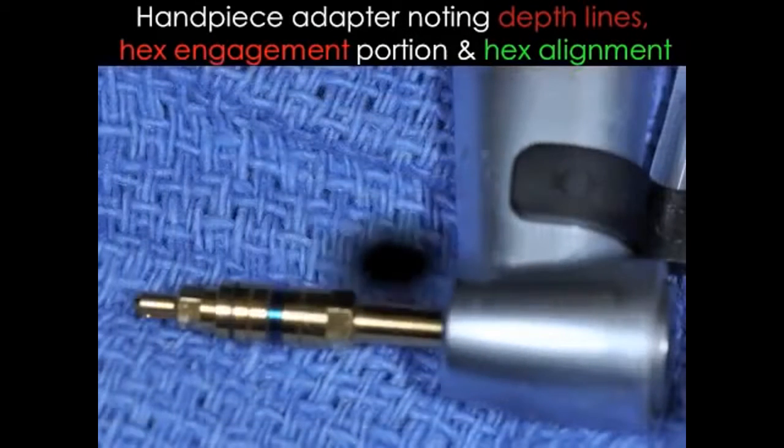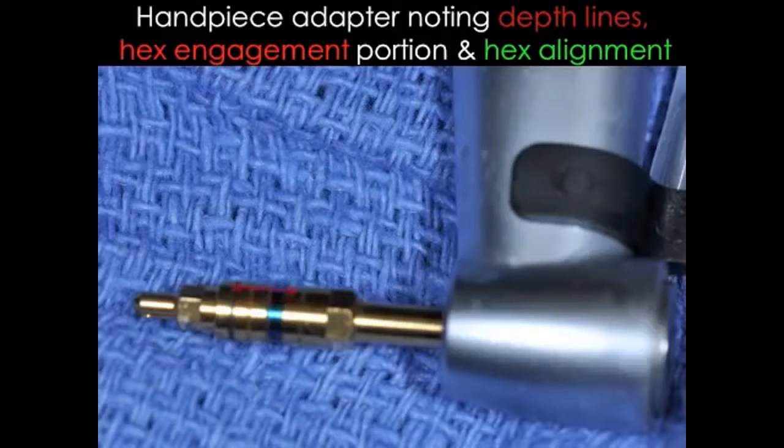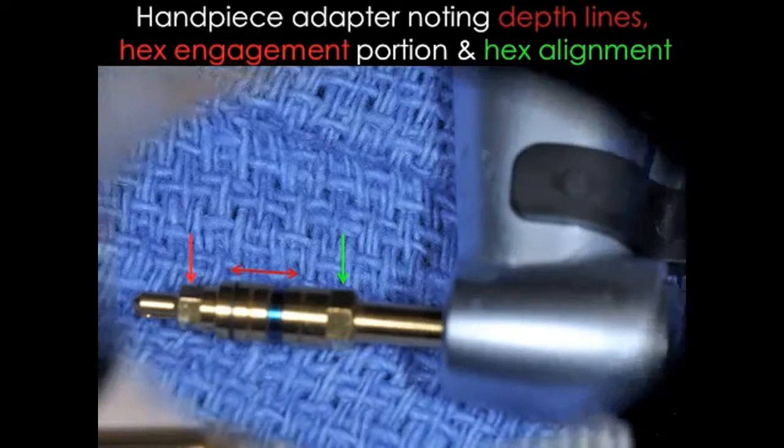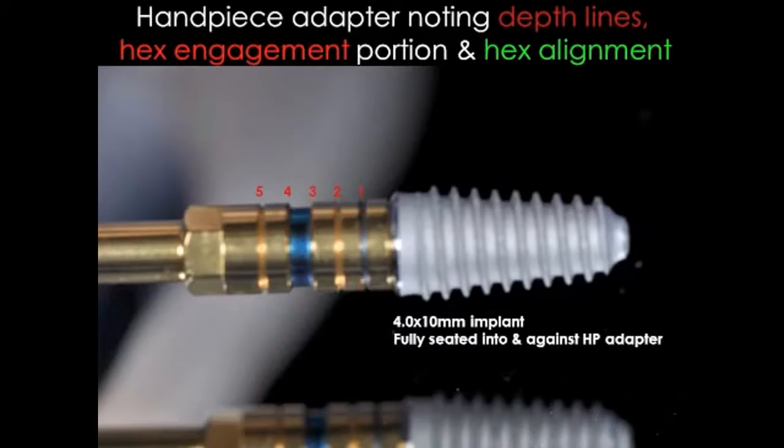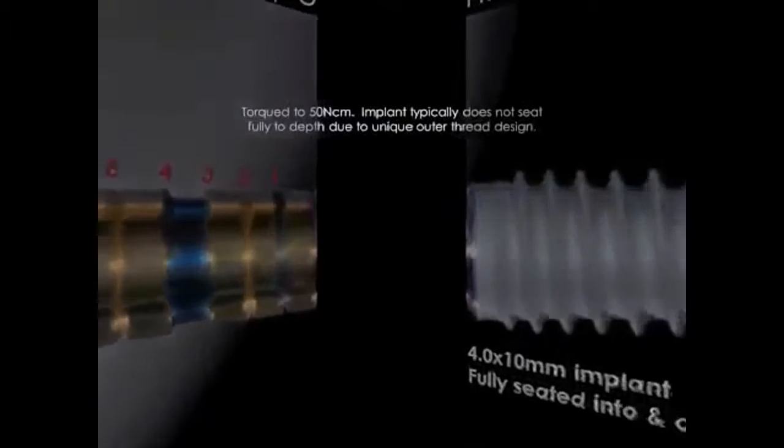Really look at the handpiece adapter here. You can note the different depth markings on there, and you can see where it engages with the internal hex, and it also shows the hex indicator for aligning the hex itself. The markings on your depth gauges there are 1, 2, 3, 4, and 5. You can note again the hex marking showing you all the time where your hex is so you can place it straight facial.